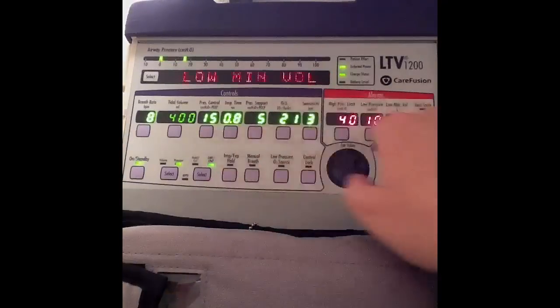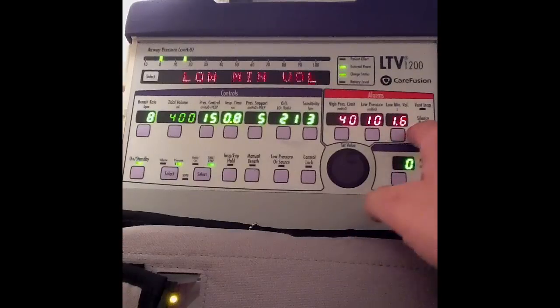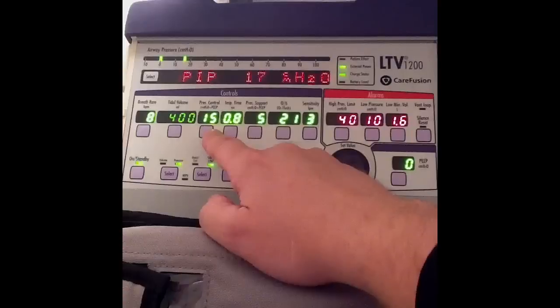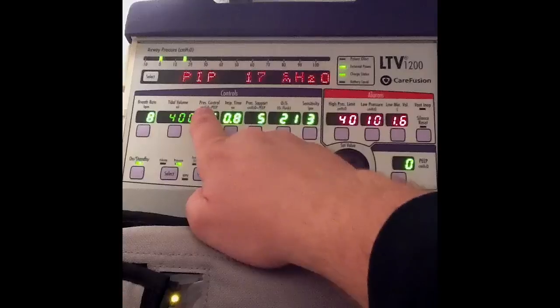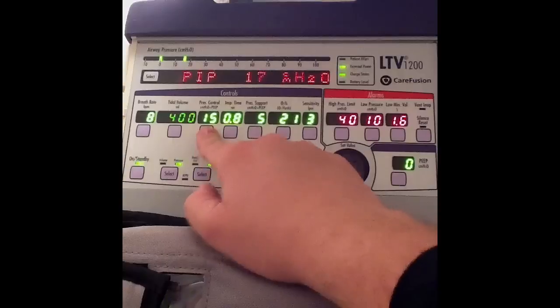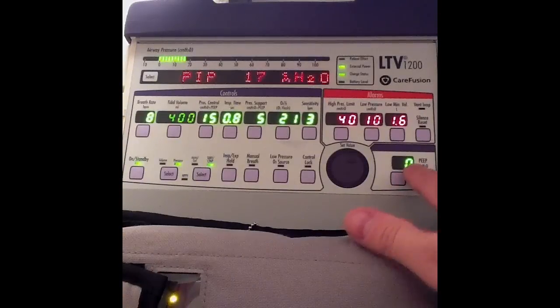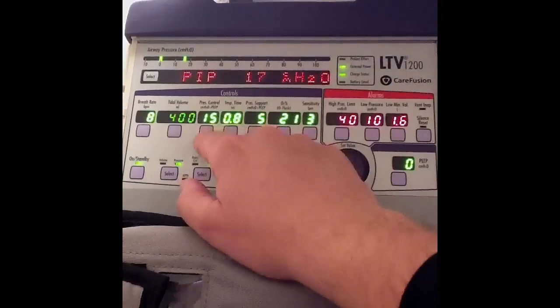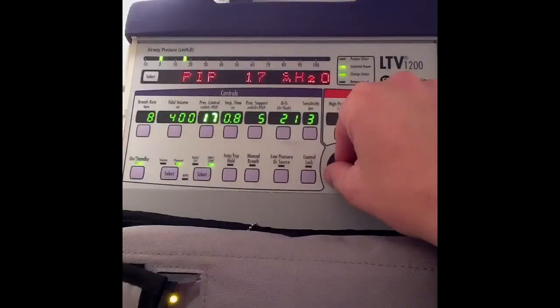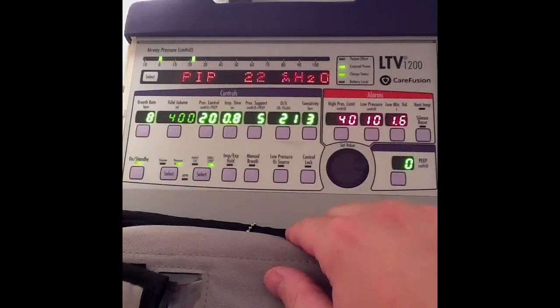You can see there's a pressure control setting in centimeters of water plus PEEP — this is what's known as a PEEP-compensated ventilator. The pressure control is always plus PEEP; right now my pressure is simply 15 because I have zero PEEP. That will change if I add PEEP. Let's say I want a pressure of 20 instead of 15 — I'll select the 15, go up to 20, hit select again, and now I'm delivering 20.